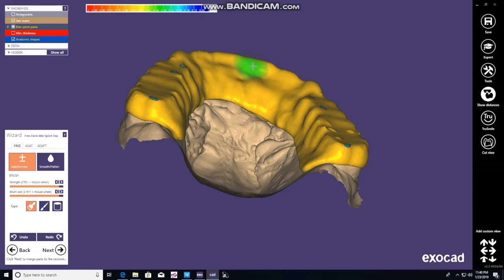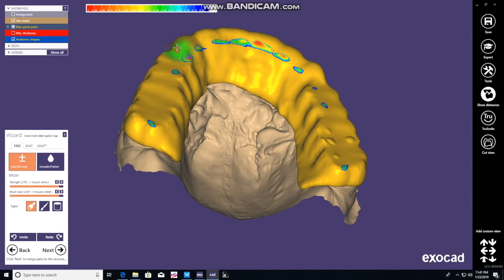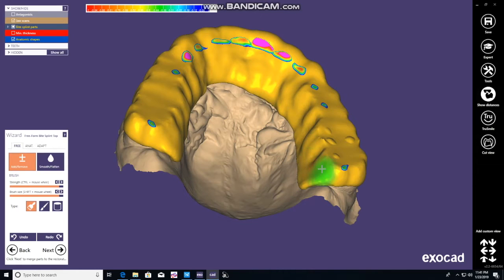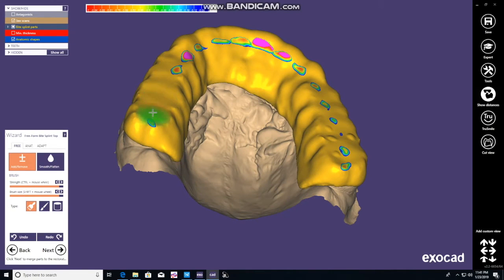Here we're thickening on the incisal edge or lingual surface of the maxillary anteriors. We'd like to retain a ramp that provides guidance or disclusion for the patient. We just keep adding until we see the occlusion appear with the mandibular teeth. We do the same thing on the right side — patient's right side — we're going to add some more thickness. We'll come back in a minute and smooth it so it's nice and even. Just keep thickening that to where you think it's going to be adequate.